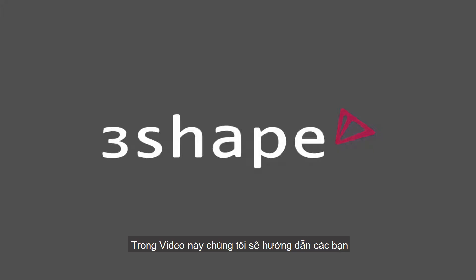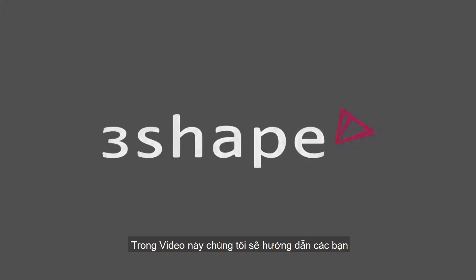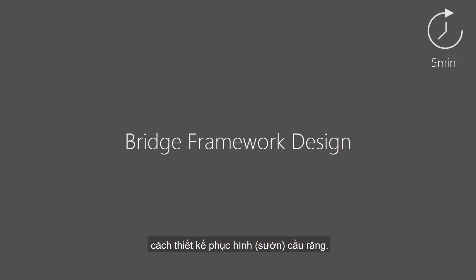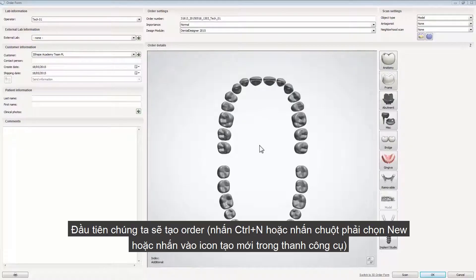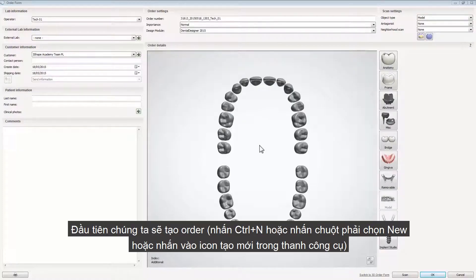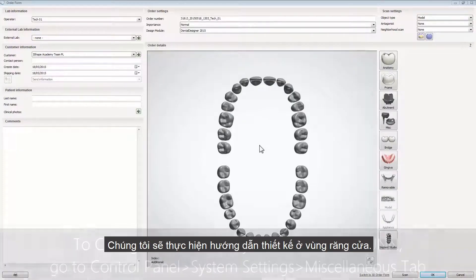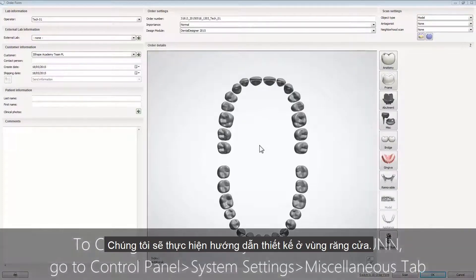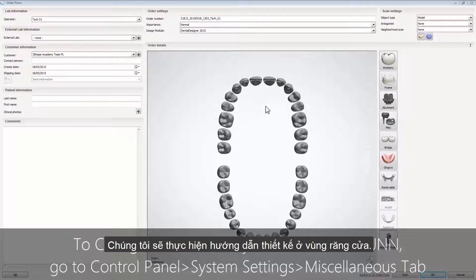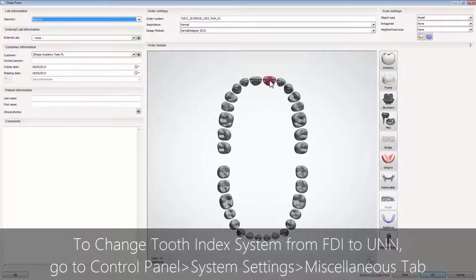In this video we'll show you how to design a bridge framework. First, what you need to do is to create an order. We will explain the design of a bridge framework based on anterior teeth.